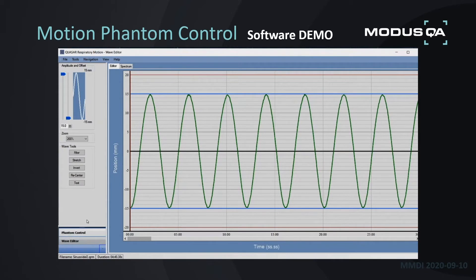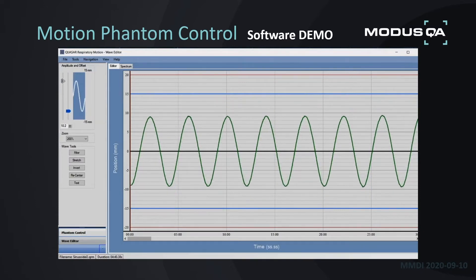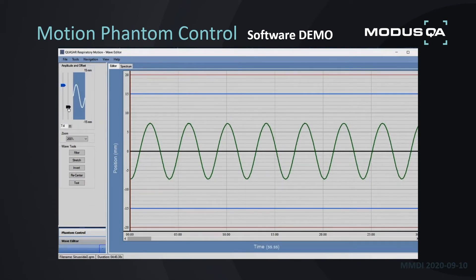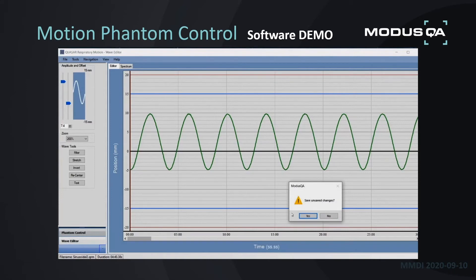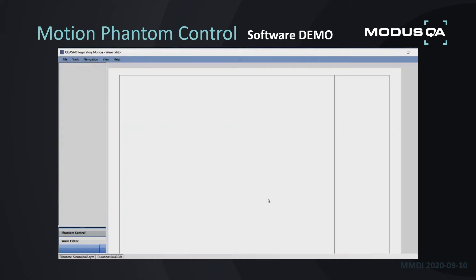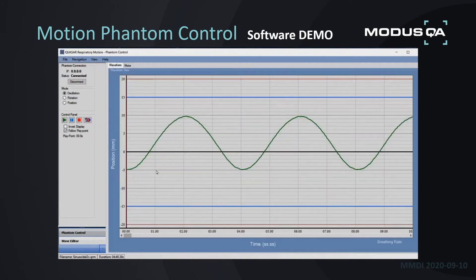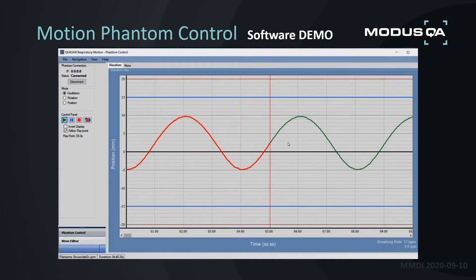Within the Wave Editor, there are many options. The main one I want to show is adjusting amplitude — currently at plus or minus 15. I can easily slide the slider bar to change it to any desired amplitude. You can also change the offset if you don't want to be truly centered. Going back to Phantom Control and saving, you can see the software automatically changes to Oscillation Mode, which reproduces any waveform you program or import with a high degree of accuracy on the Phantom.